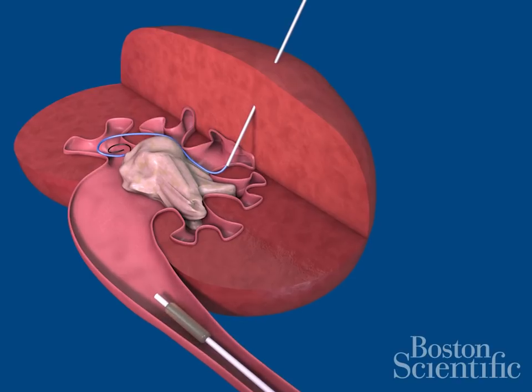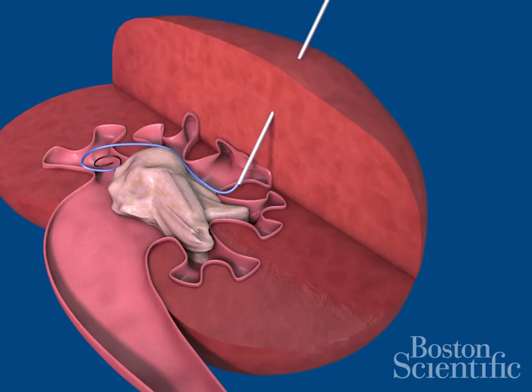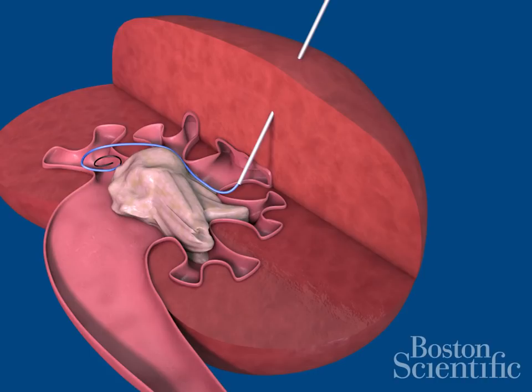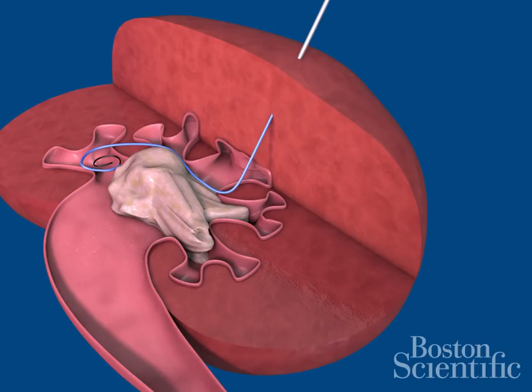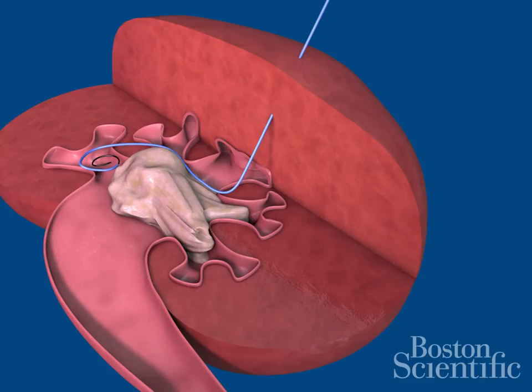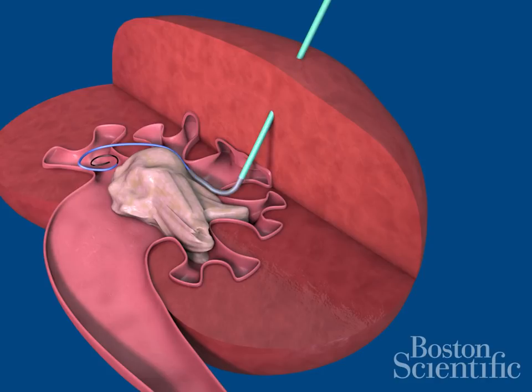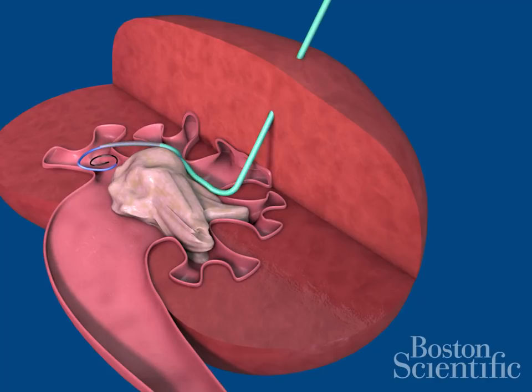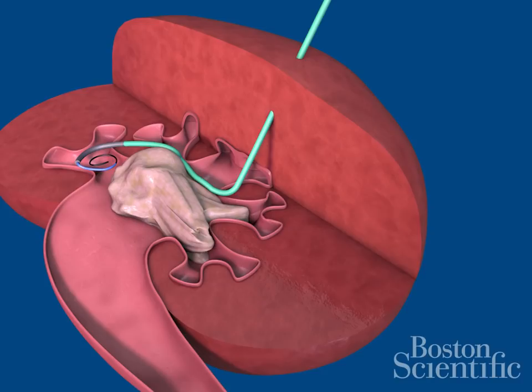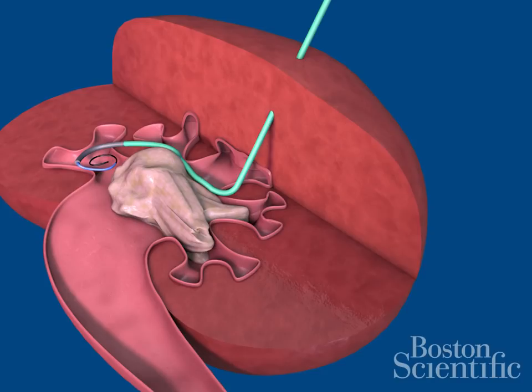Deflate the occlusion balloon and remove it. Slide the needle sheath off the wire and remove it from the kidney. Guide the torqueable catheter over the guide wire and into the open area of the renal pelvis.